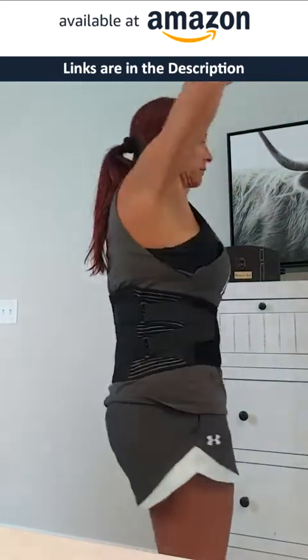I've been wearing this for about a month now. The velcro is really good on it. I've worn these kind of back braces for a really long time because I have scoliosis. A neat feature is that you can pull it tighter and overlap like that, or you can just wear it like that. So there you go — it's a size medium.